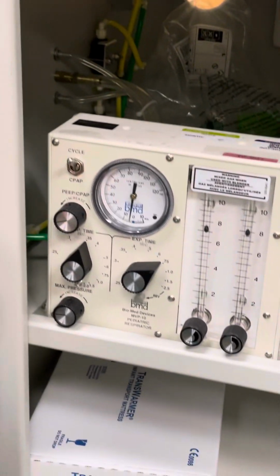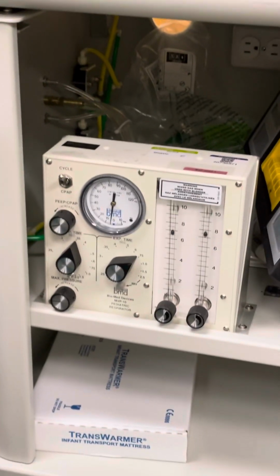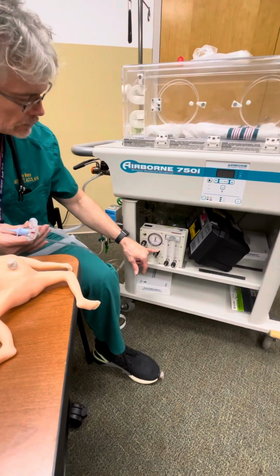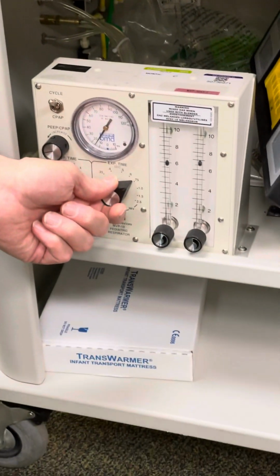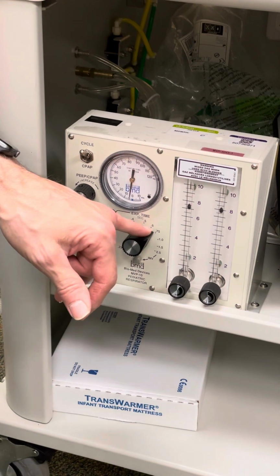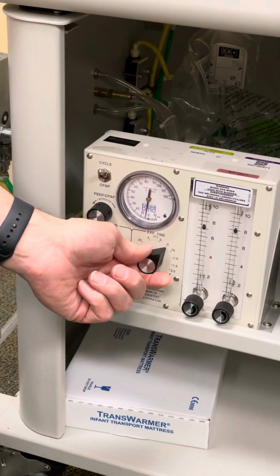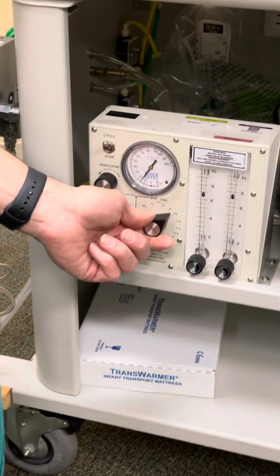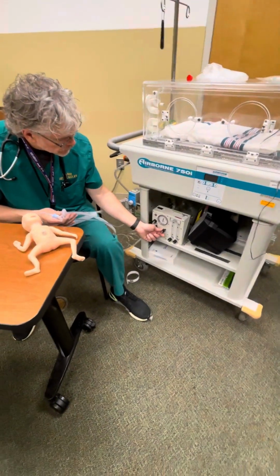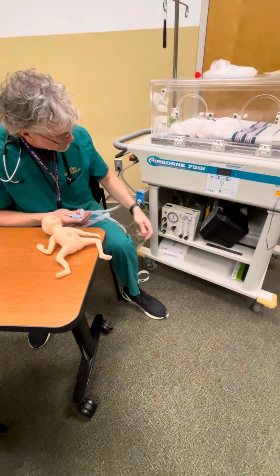And basically, if you set your I times between 0.35 and 0.4, you're gonna be good for pretty much any gestation infant. Your expiratory time is going to regulate your rate. Without doing fancy calculations, a good one is just 0.75. But if you drop your expiratory time, the rate increases. Now you can calculate it or you can just count it, but you're going to be anywhere between 40 and 60 breaths per minute as far as your ventilation rate on the Airborne 750i.